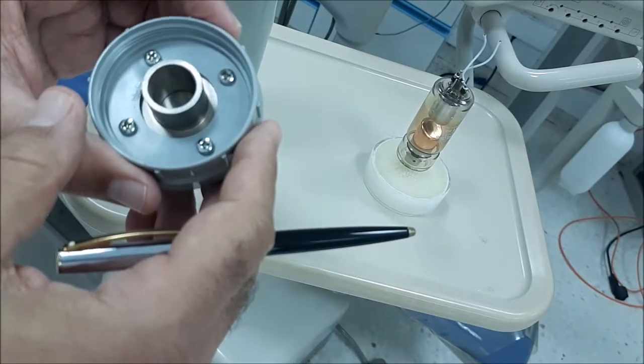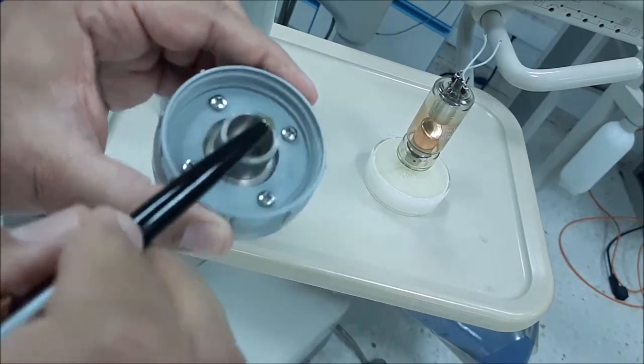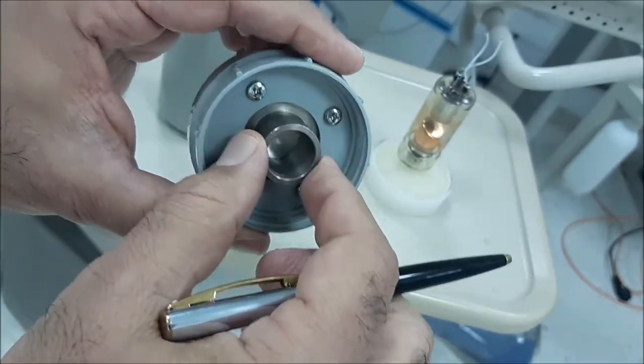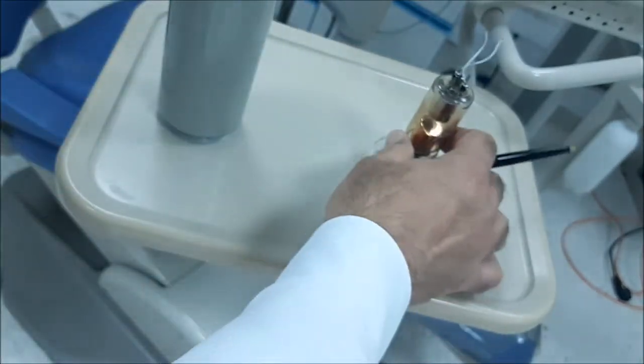The next very important component is the collimator. The collimator, as you see it, this rounded collimator, is made of lead.